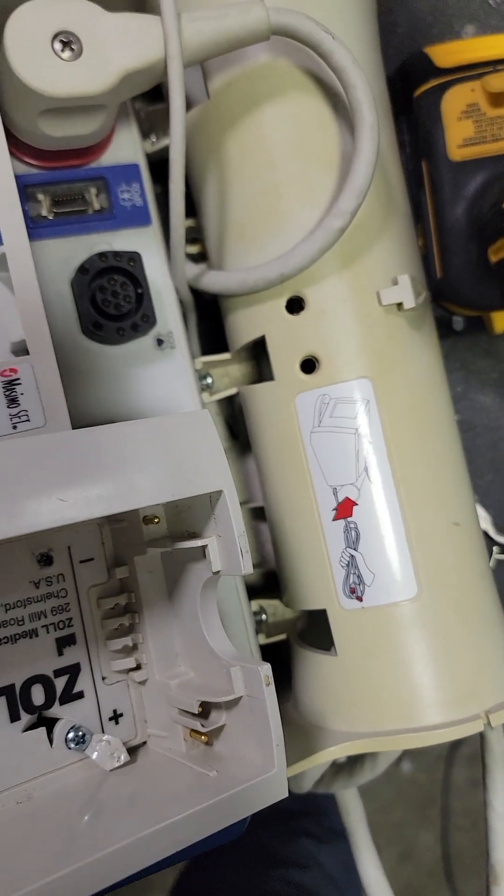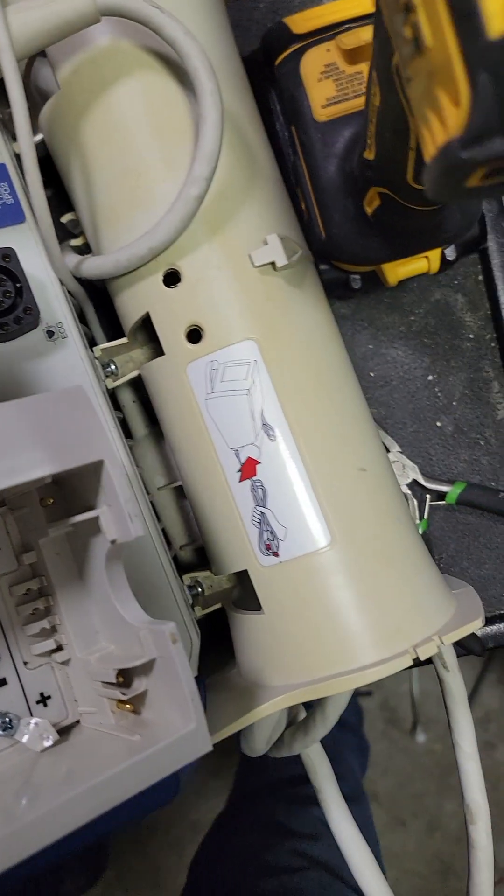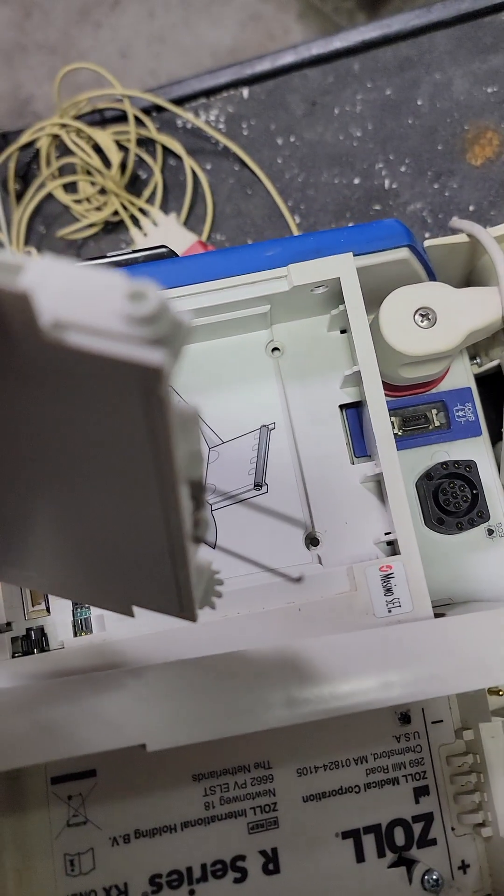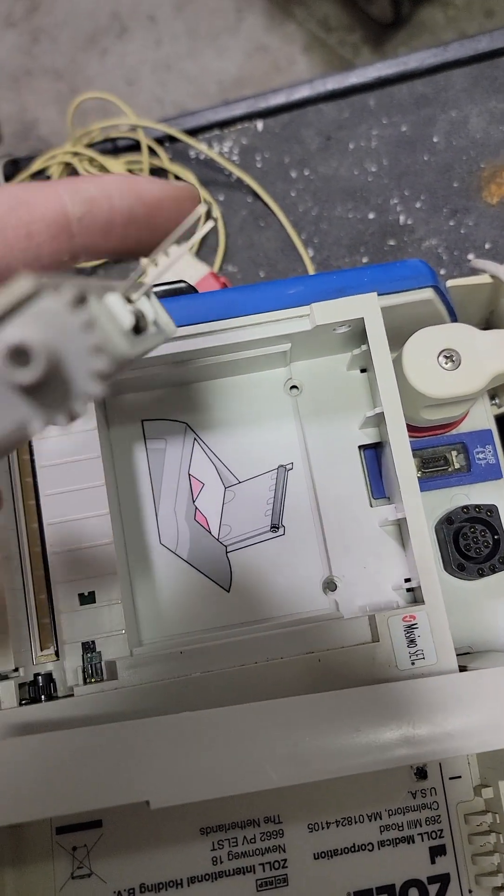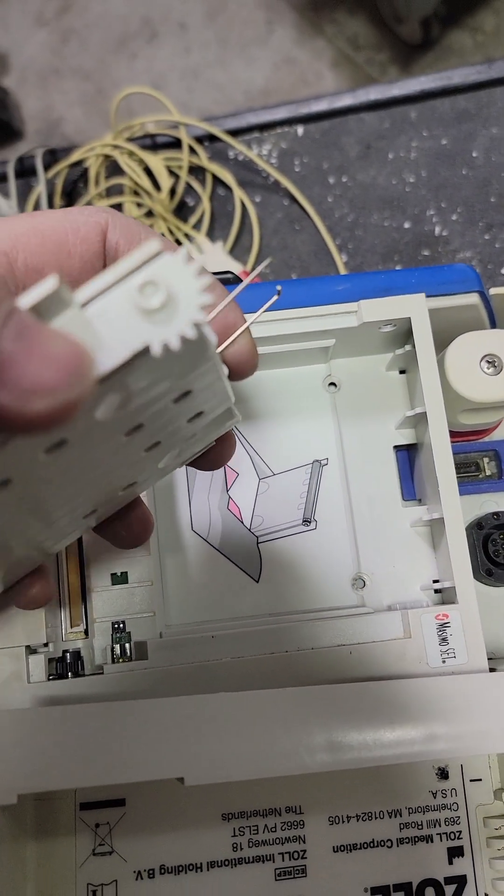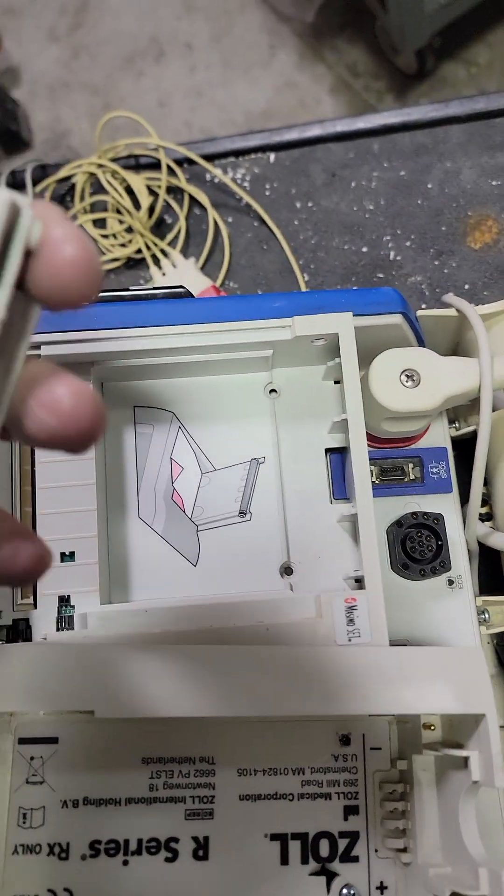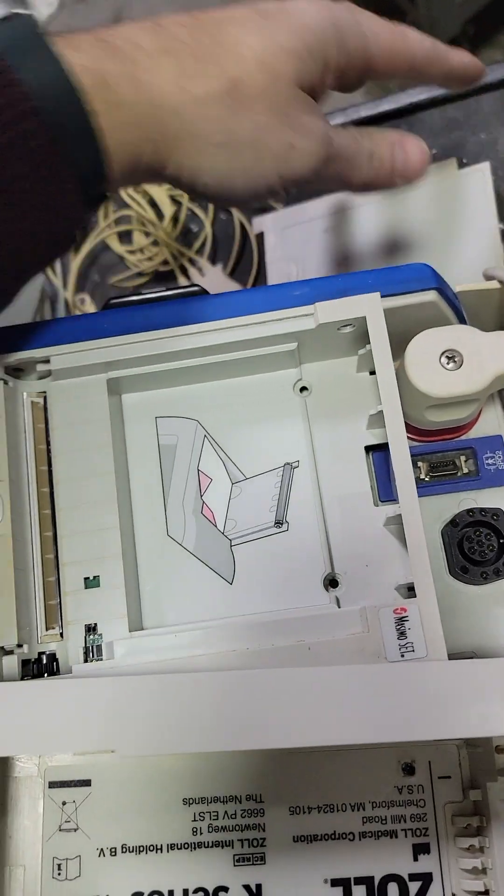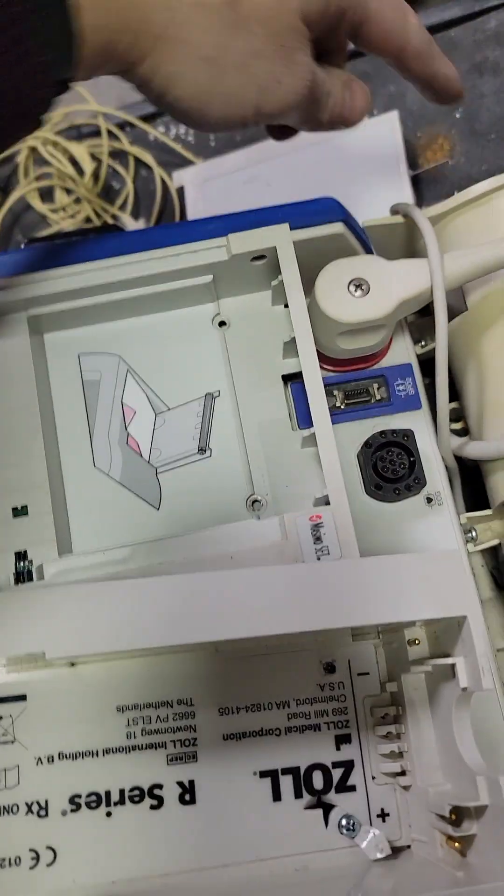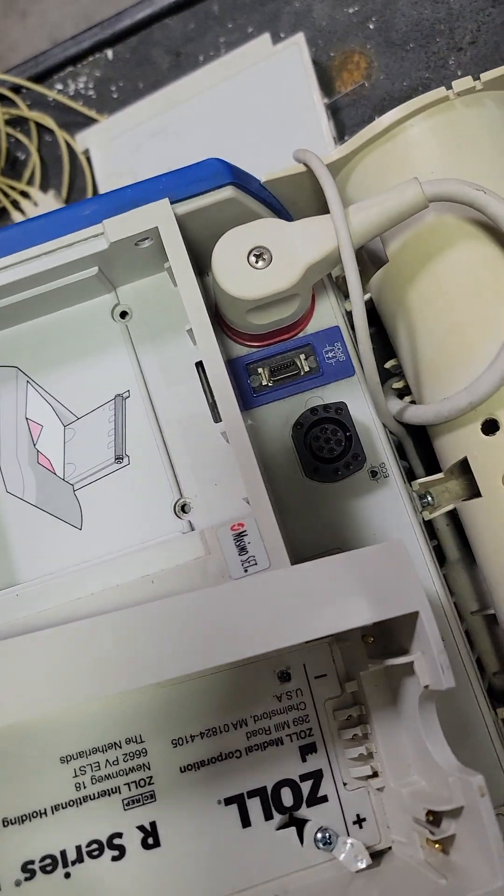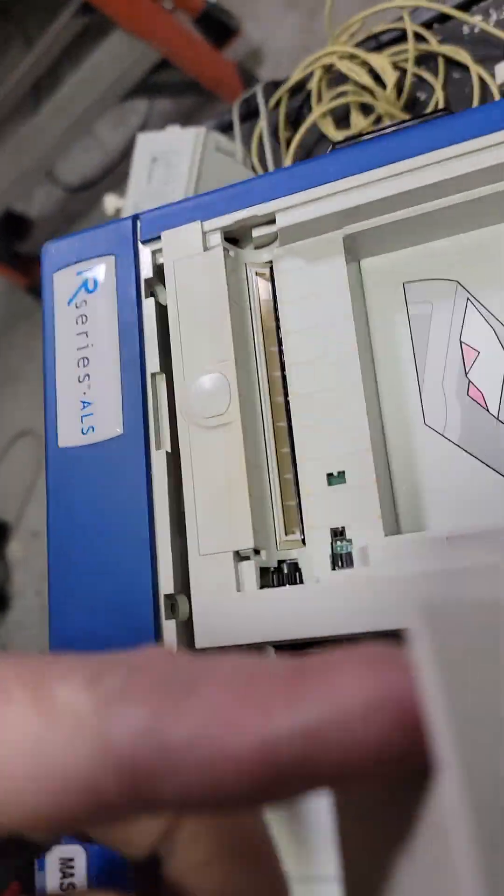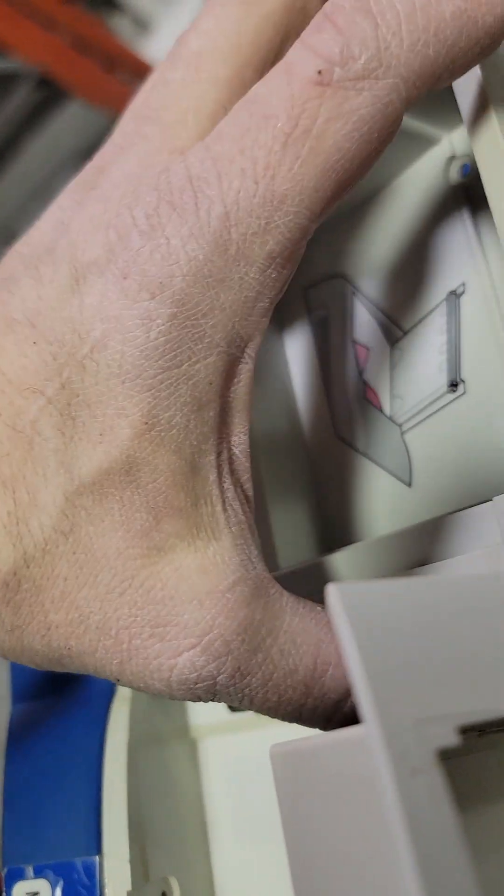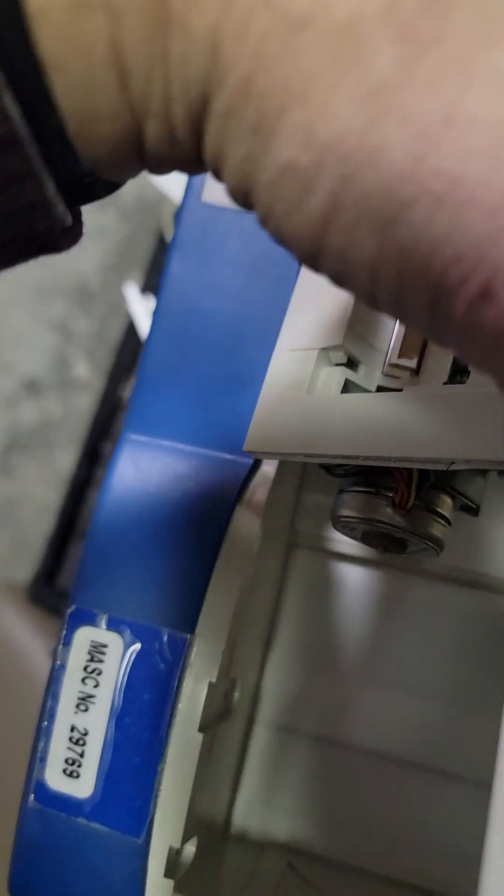On the printer, pull the door. These little tabs bend so you can get it in and out. Pull that, watch the spring. Take these two screws. Once this is out of the way, then you can get this back up.